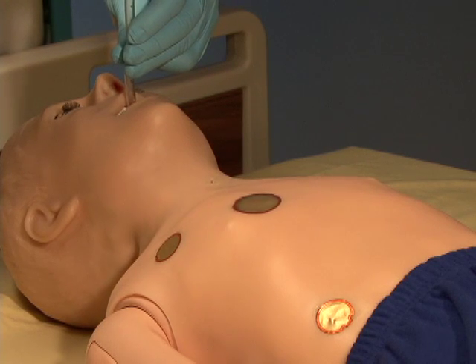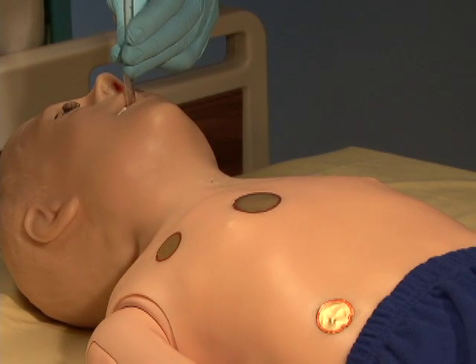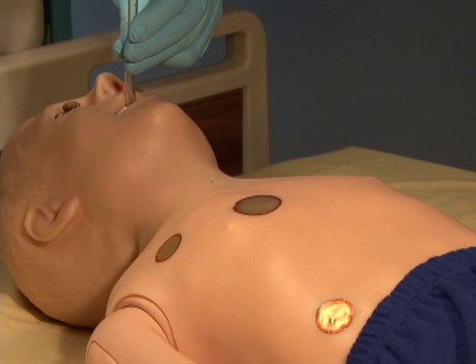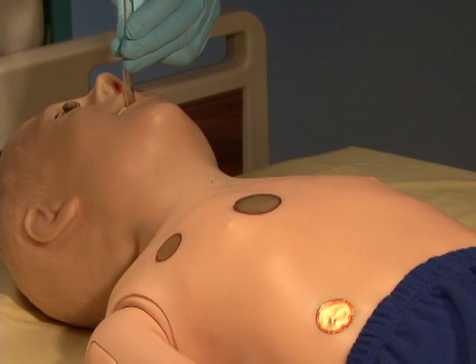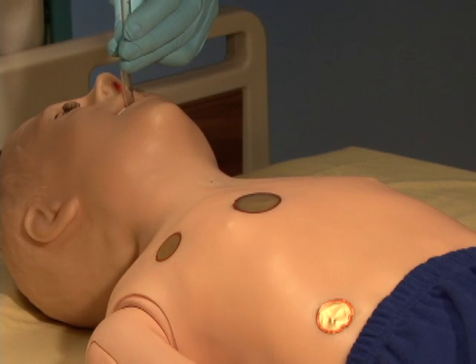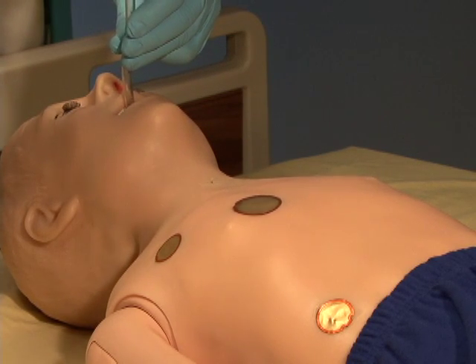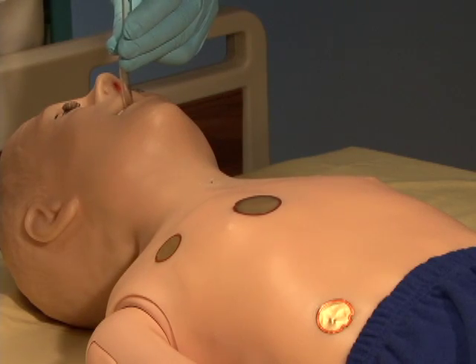Once intubated, sensors detect the depth of the intubating tube. Should the tube be inserted too deep, the left lung is automatically disabled, realistically demonstrating right mainstem intubation. Correcting the tube position re-enables the left lung.